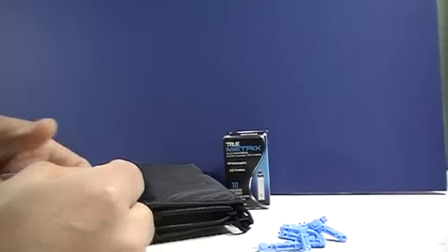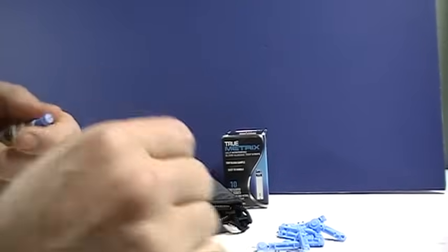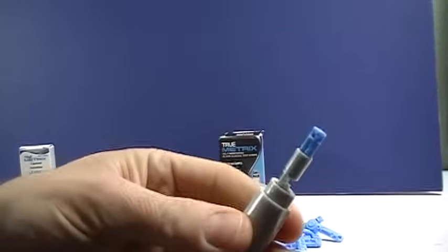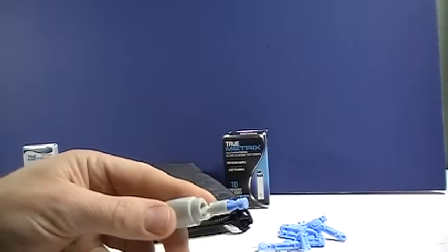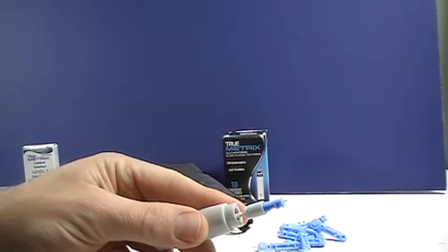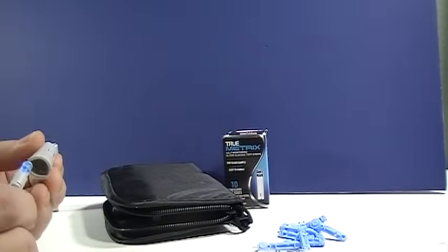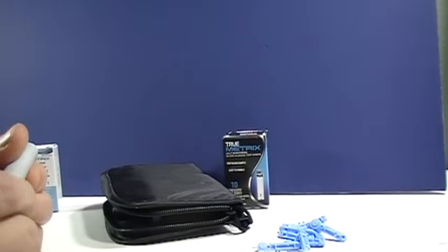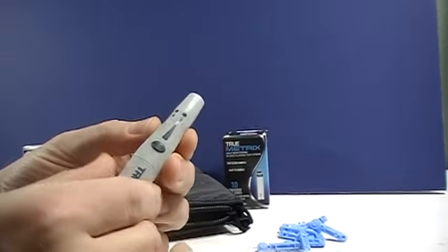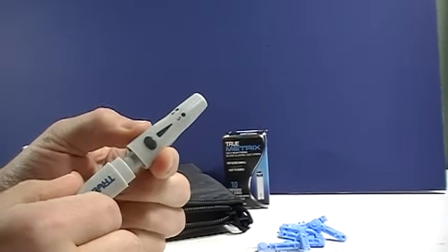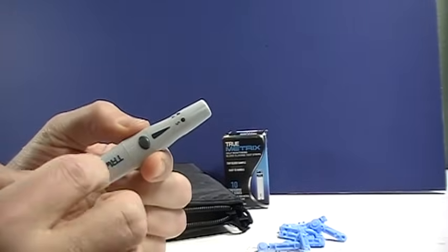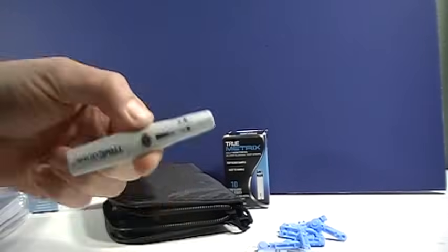You twist off the little safety cap here and you can see the needle is in there. Replace the lid like that. You can see this loads the spring and then you push this button to poke your finger and we'll do that in a minute.